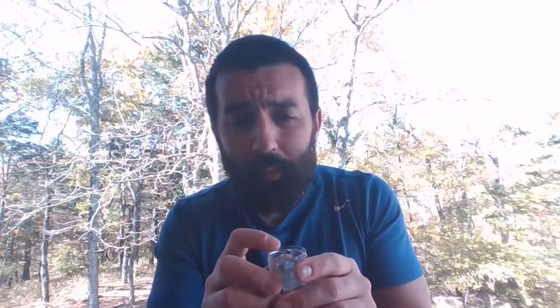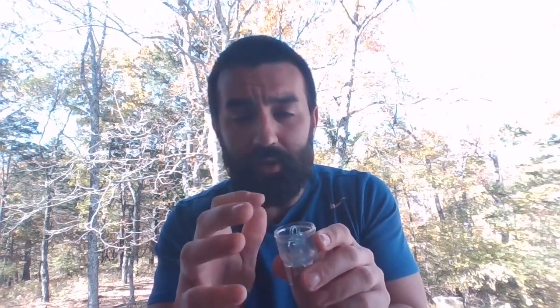So effectively, we have a baffle. A baffle is like a big barrier that doesn't allow bigger particles to go past it. We only want stuff coming out of this nebulizer that has the characteristics of being able to deposit in a patient's lower airways. You guys will get into immense detail about optimum particle size and things like that. For bigger particles, we would rather them hit that baffle and drop back down into the medicine cup and have a chance of being made into a smaller aerosol particle, rather than being emitted by the device and having no chance of getting into the patient's lower airways, instead depositing in the upper airways, things like that.